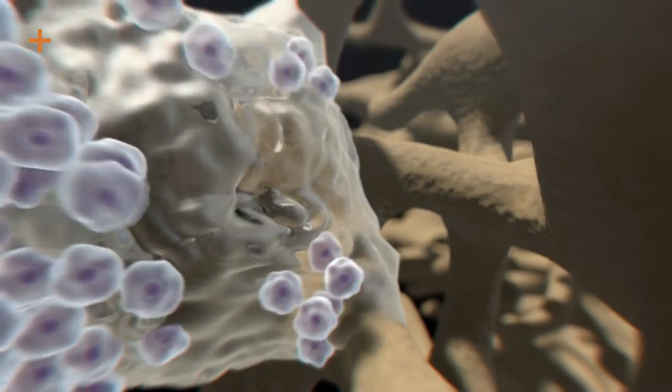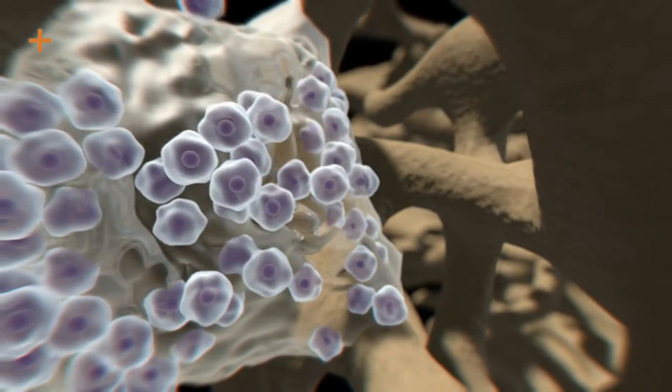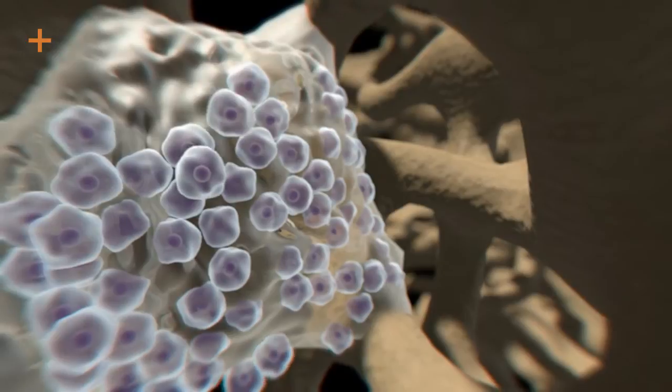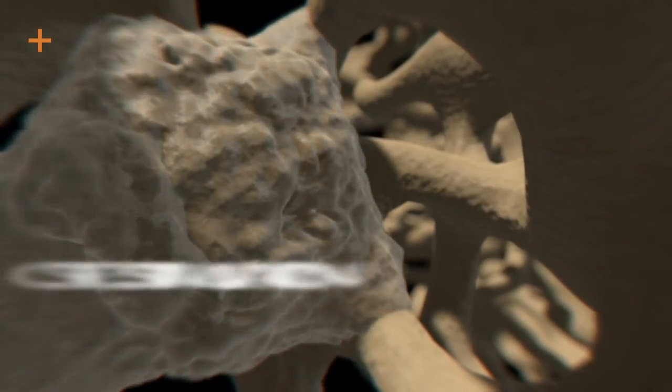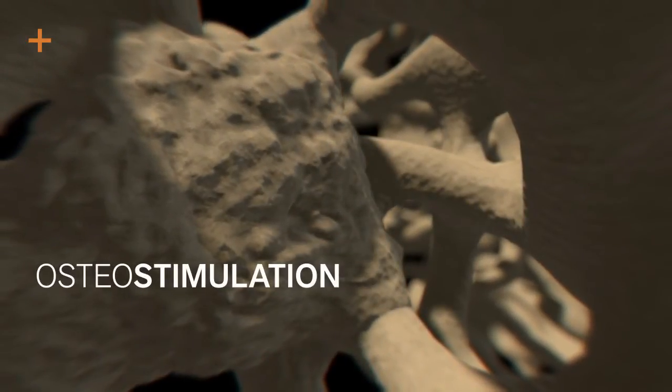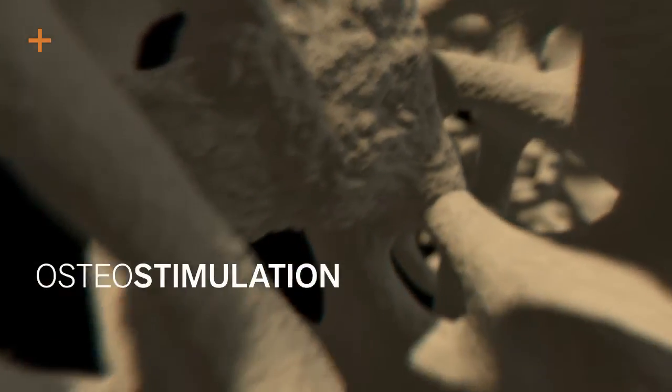The fact that silicon and phosphate concentrations are increased around the material causes a genetic activation which induces a differentiation and proliferation of osteoblasts. These osteoblasts are the activators of bone remodeling.